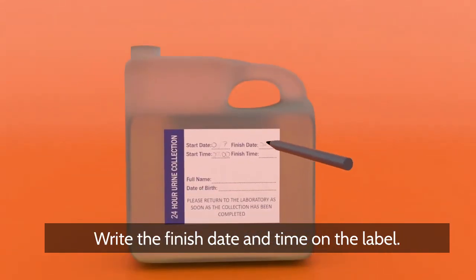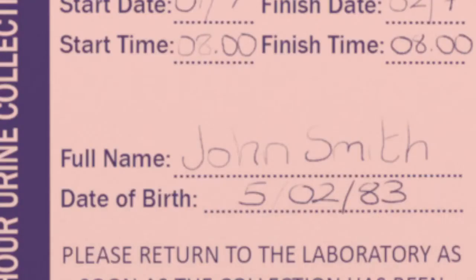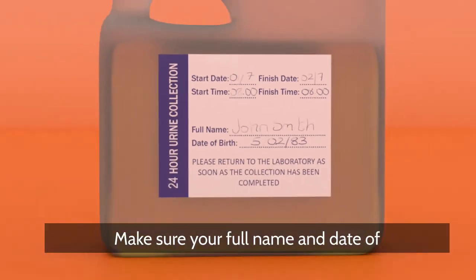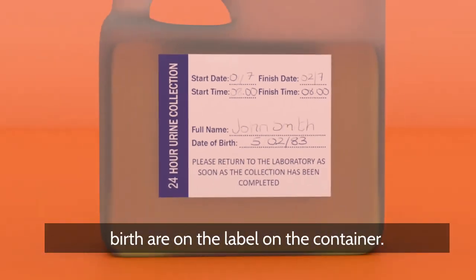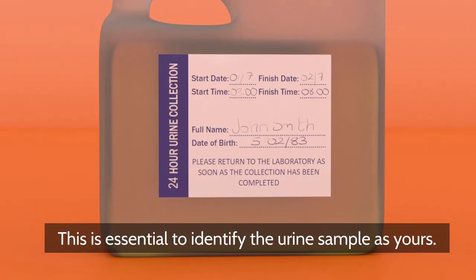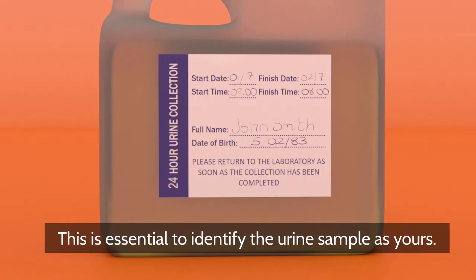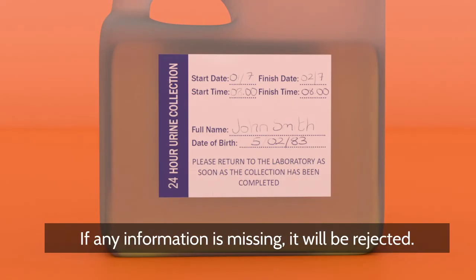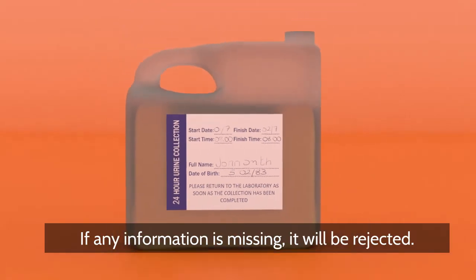Write the finished date and time on the label. Make sure your full name and date of birth are on the label on the container. This is essential to identify the urine sample as yours. If any information is missing, it will be rejected.